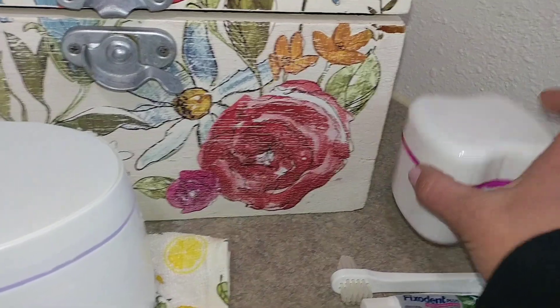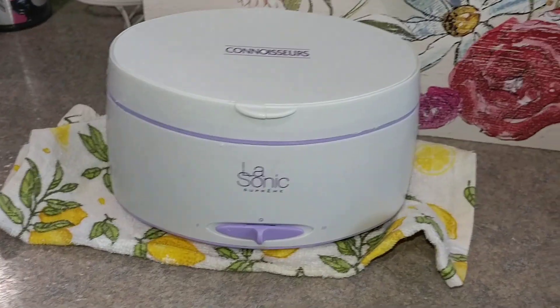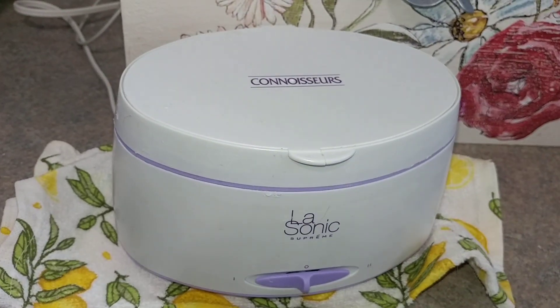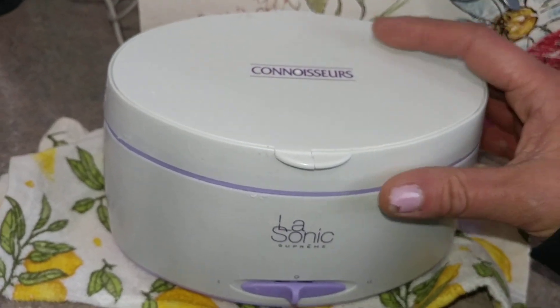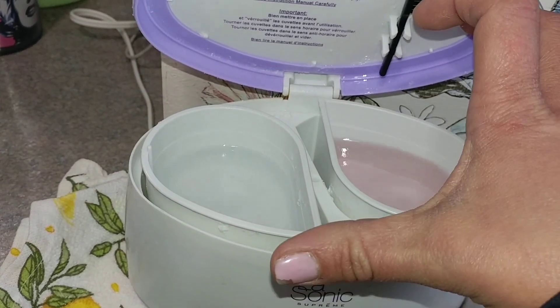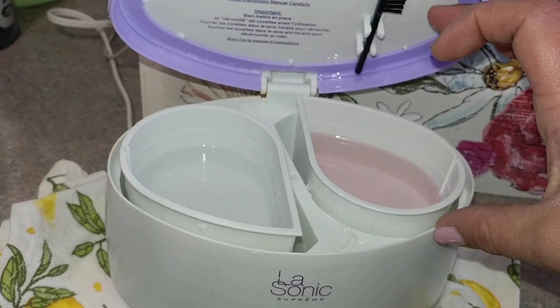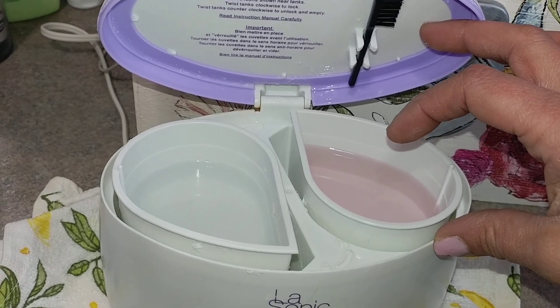So this guy I'm going to use for traveling. This is what I use to clean my dentures — this one's actually a sonic bath and it vibrates and it's supposed to clean the denture really well. Since I'm a germaphobe, that works for me. But I just keep the Stain Away over here and do that while I'm in the shower, and then the Polydent I use every night and clean overnight with the Polydent for smokers.